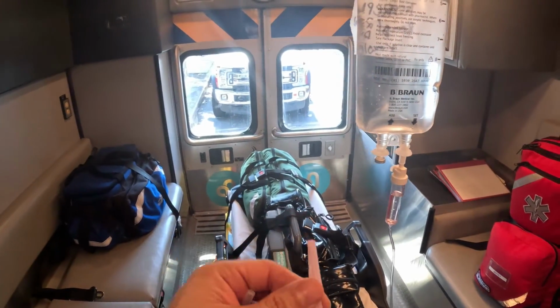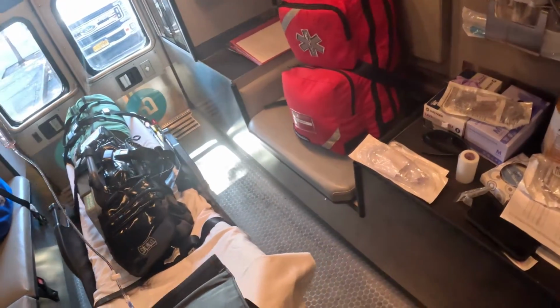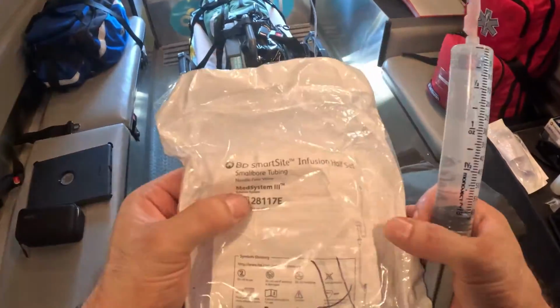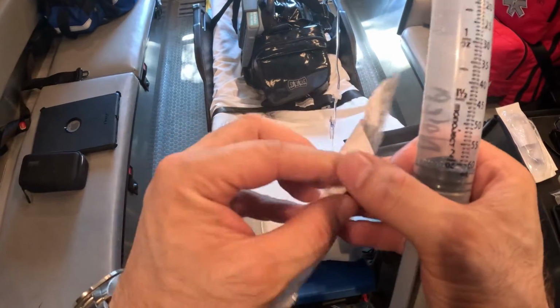Basically, you're gonna close my sharps. This is gonna go into the sharps container. I'm not going to disconnect this just yet. Why? Because the next thing I like to do is take my half set, and I already explained to you, it has no administration, has no drip chamber, and it's 6 mLs. So I usually just open it like so.